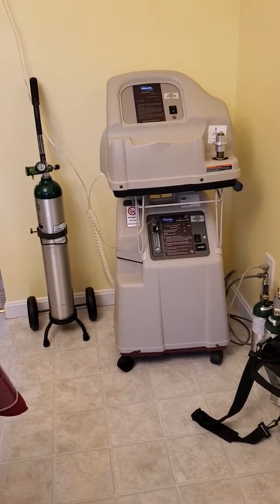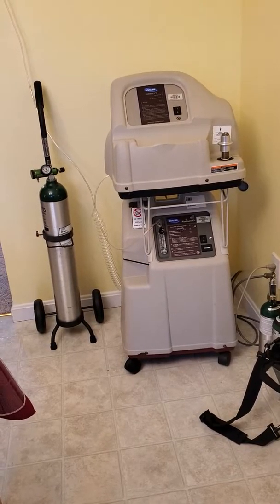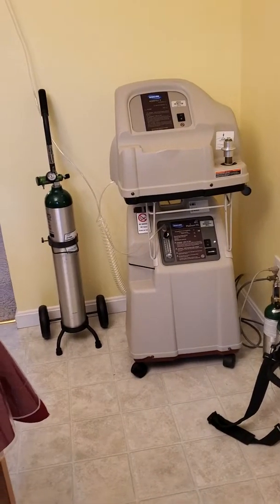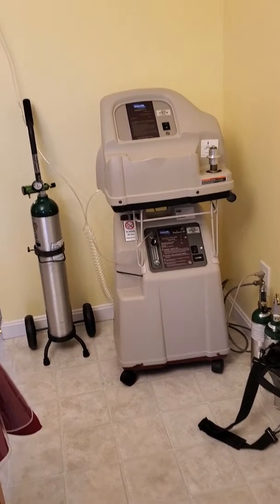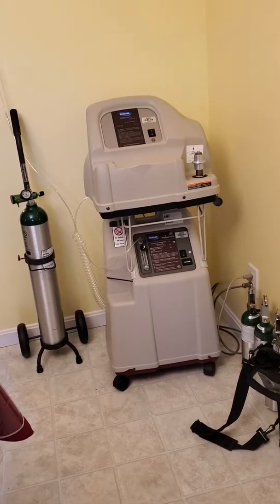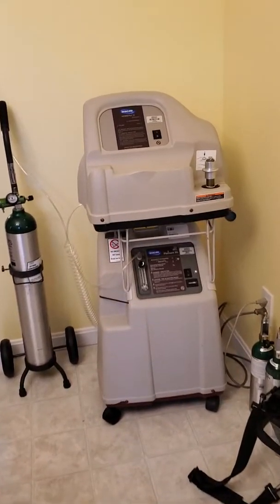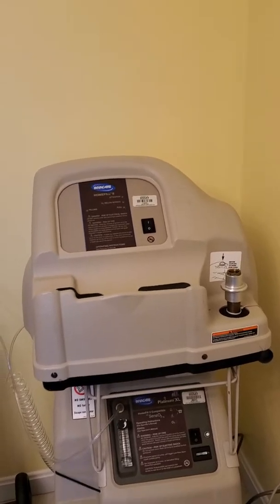Hello, it's Bill from One Betty Bill. Just want to do a short video, quick and easy, on what you need for home therapy oxygen. If you're wearing oxygen at home — whether just for sleeping or for most of the day — here's what I'd recommend that you have: basically the concentrator and the unit to refill your tanks.